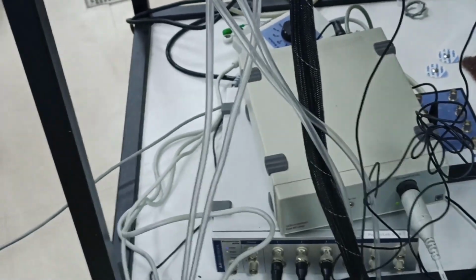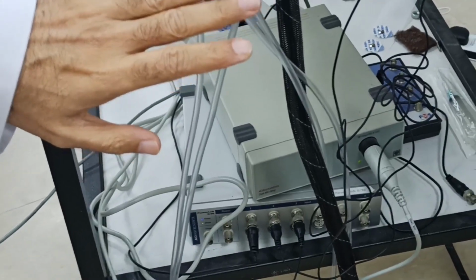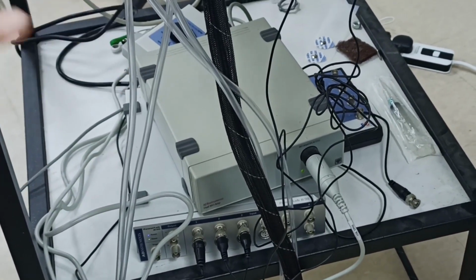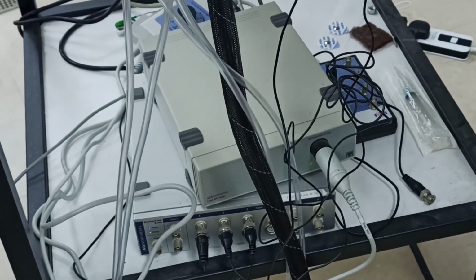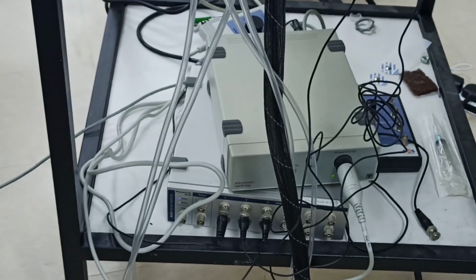Okay? So again, this is protection, that if we want to have an electrical device attached, it should be safe for human beings. And this is one. In some of the other transducers or bioamplifiers, you will have a figure just like a human being, head and 2 arms and 2 legs.